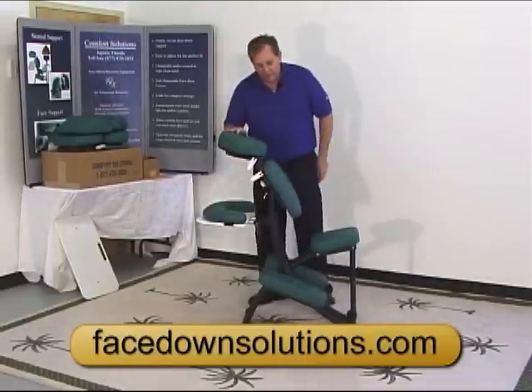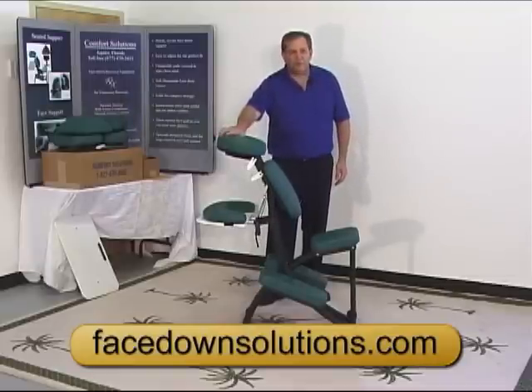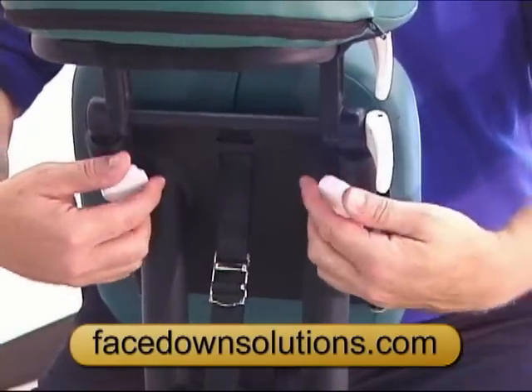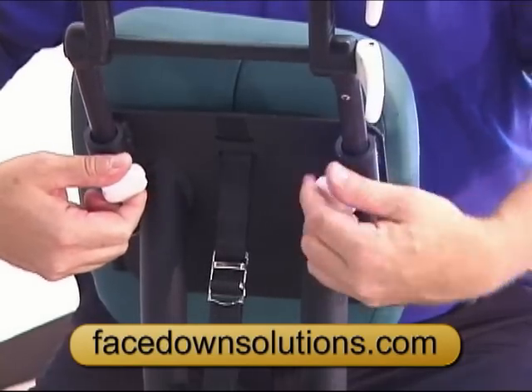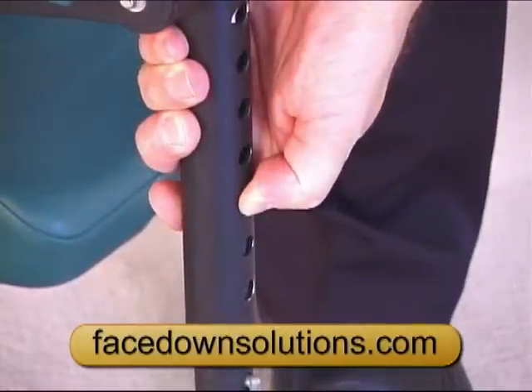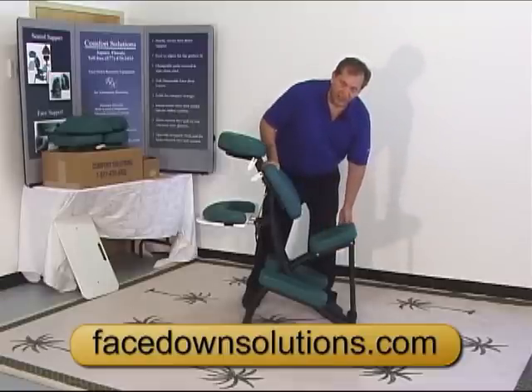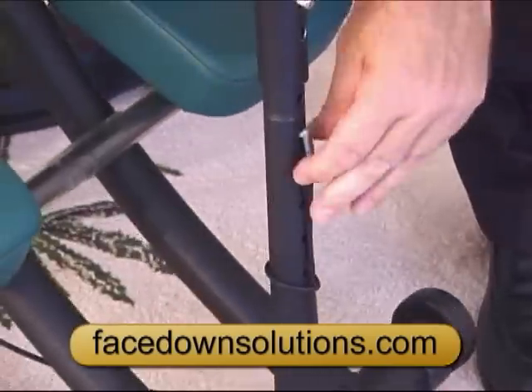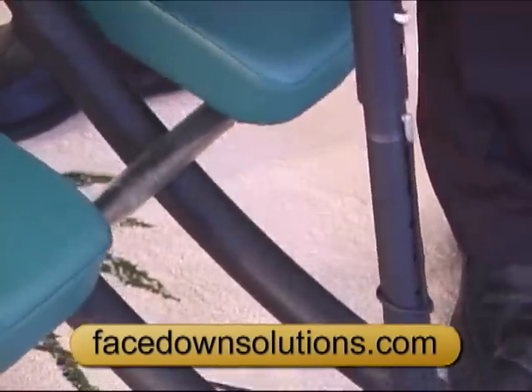This chair comes out of the box probably set up for anyone between four foot eleven and six foot four. If you're on the particularly high side of that, you can adjust the headstock by loosening these two knobs and raising it. If you want to adjust the seat height, you can do that simply by pushing on the button — that raises the seat and also changes the angle. To adjust the angle back, you simply partially close the chair and move the Z-clip up one notch.